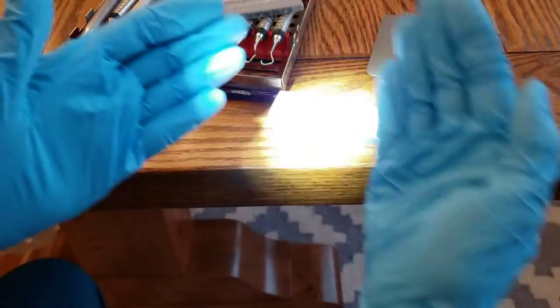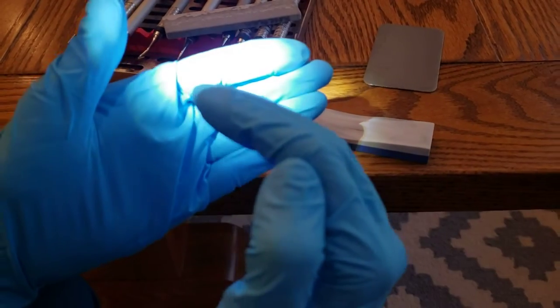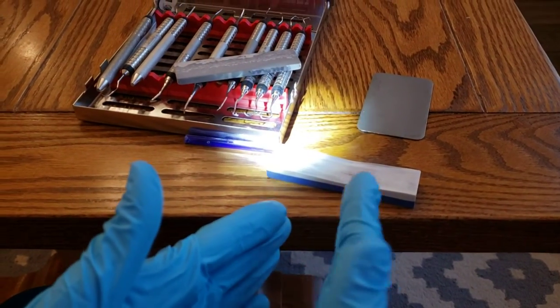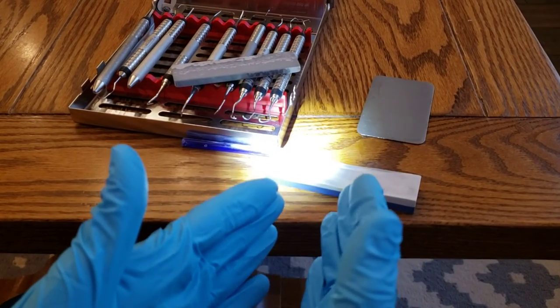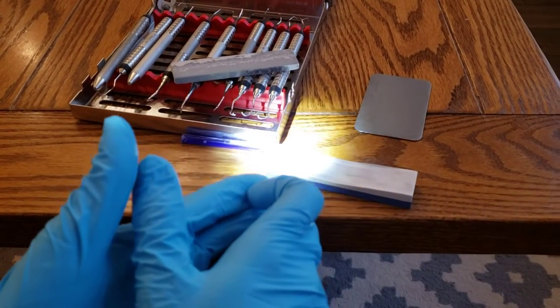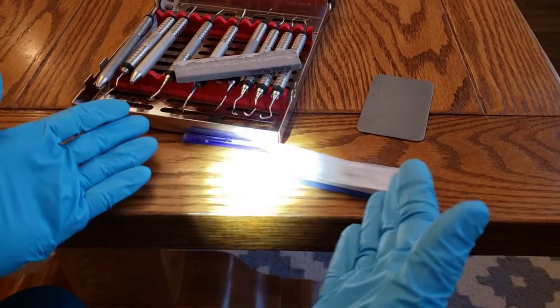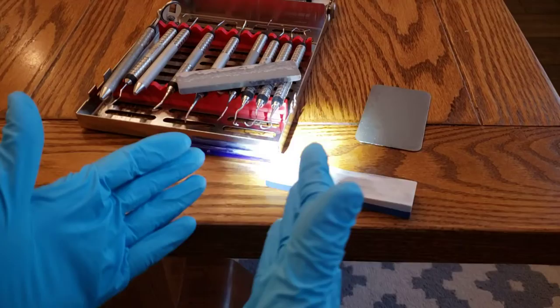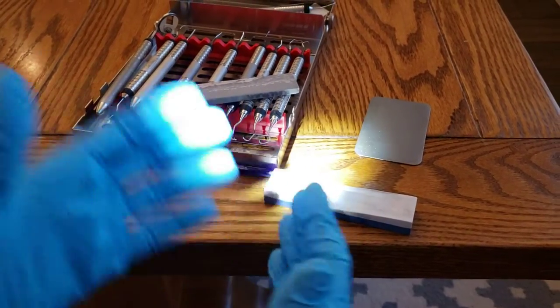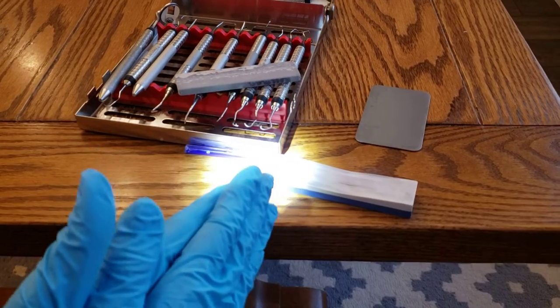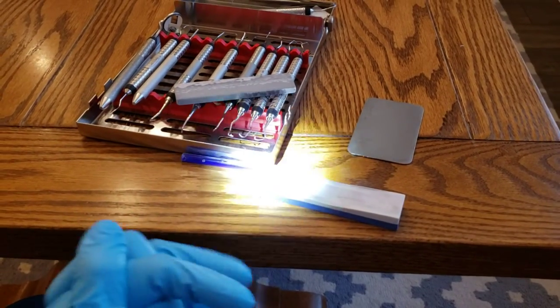So I think that's about it. Just remembering that with your curette, you're going around the toe. With your sickles, you're going off the end, making sure that you've got that terminal shank and the relationship, and then just three minutes before, three minutes after. I had made a comment that I can do a whole set in like three minutes. And it's just because you get those basics down of how to hold it. You get the angle down and it's really quite quick. So hopefully that helps and happy sharpening.